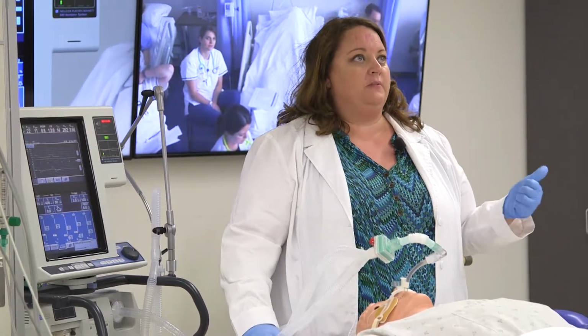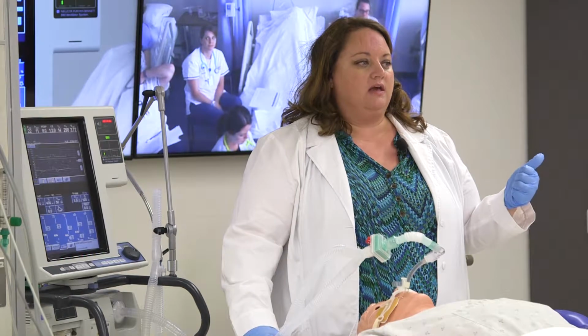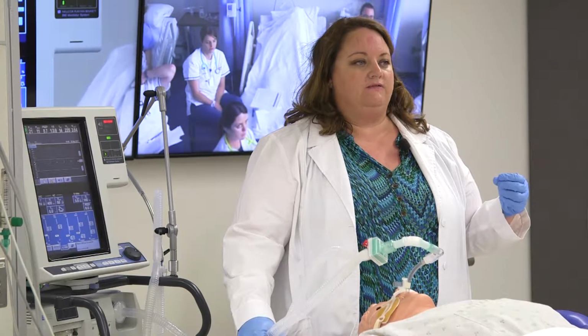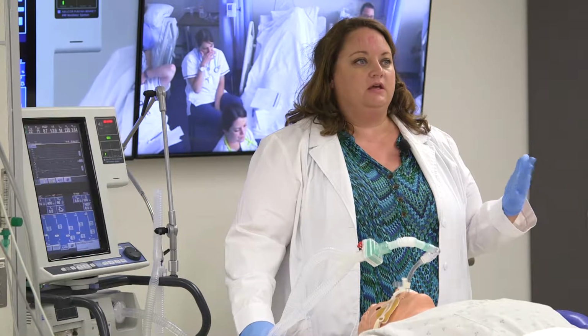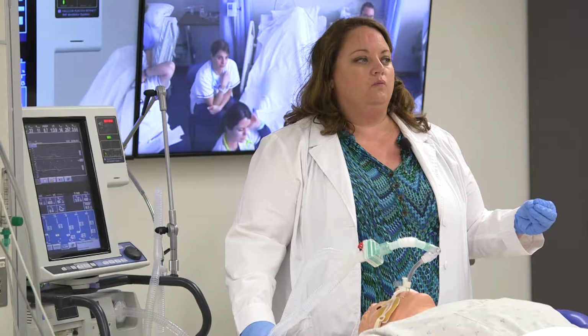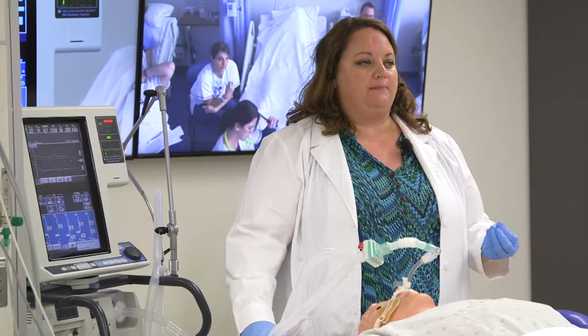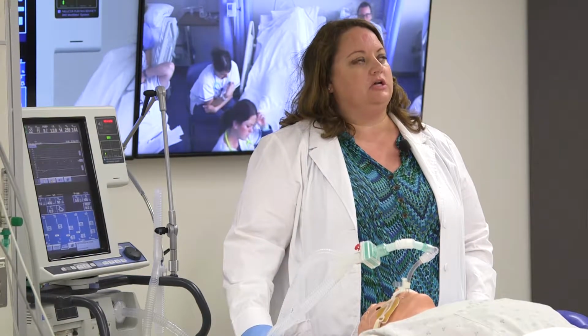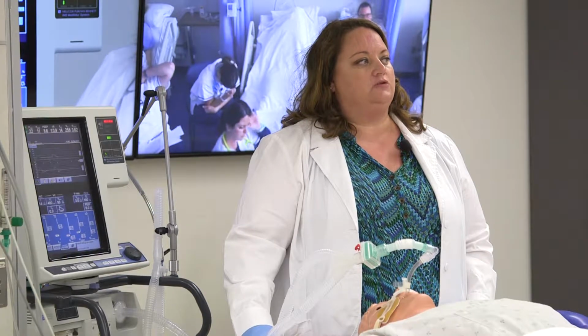But the leak can come from a lot of places. It can come from around the tube. It can be within the tubing itself. It can be from the cuff. It can actually be from the patient. So the ventilator itself, when it registers what's happening, if there's enough of a leak in the patient, it can register as a low pressure alarm as well. That happens generally when there's a chest tube and there's a very large patient leak.